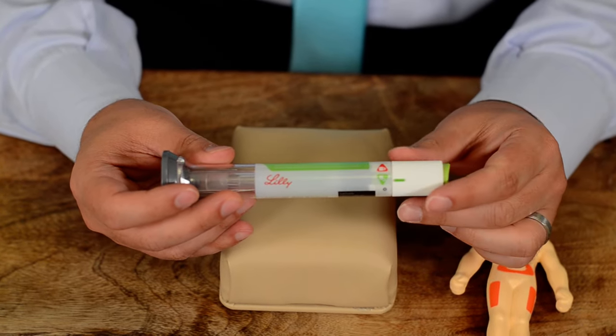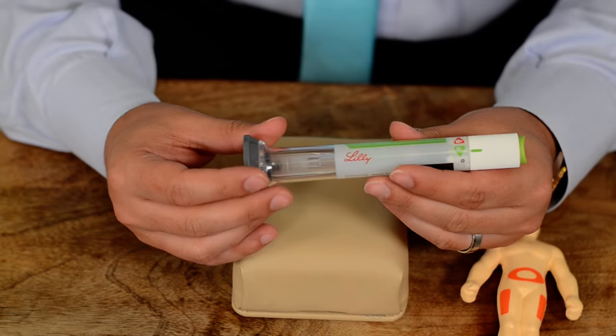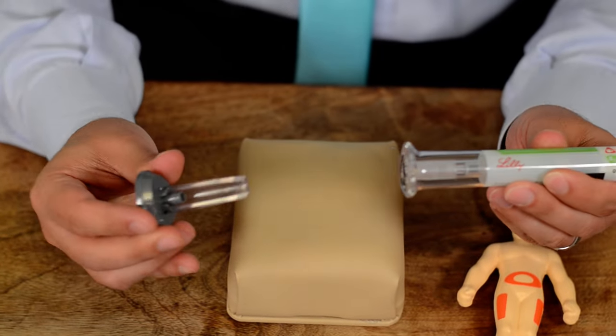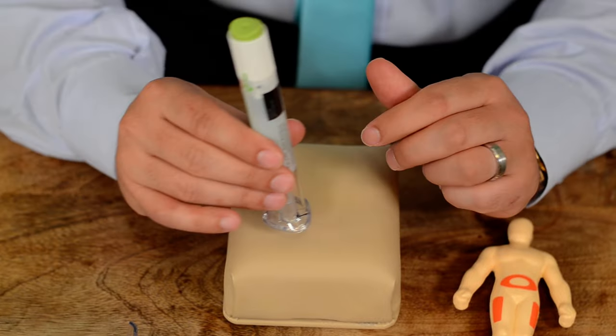You can push the plunger, which you do not do until you take the cap off. This is step two, and then put it on your skin.